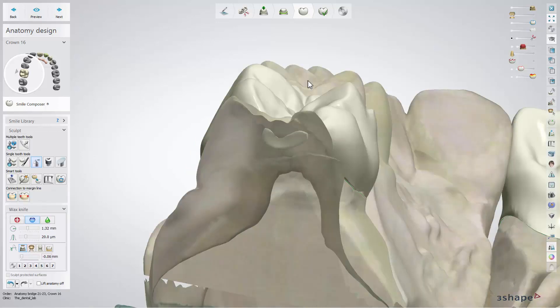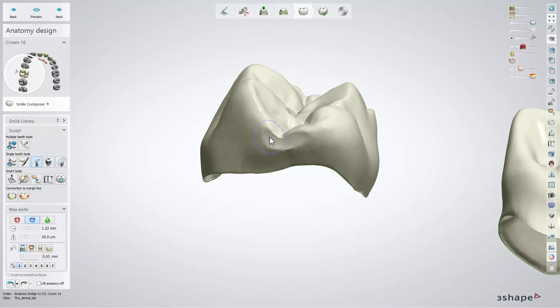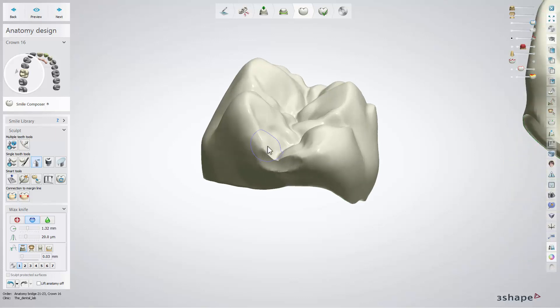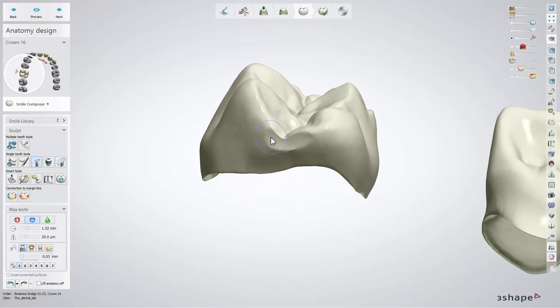For example, you can adjust contact points by removing material. Choose the preparation scan button, set the value and adjust the design. Material will be removed only to the chosen value. You can set that value as the default for one of the buttons by clicking the record button and the button under which you wish to keep these settings.